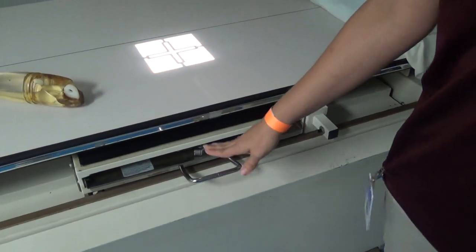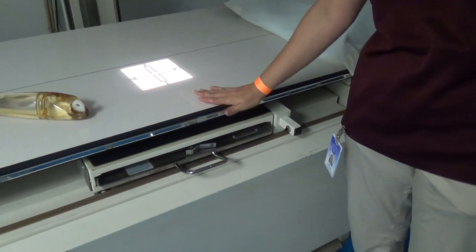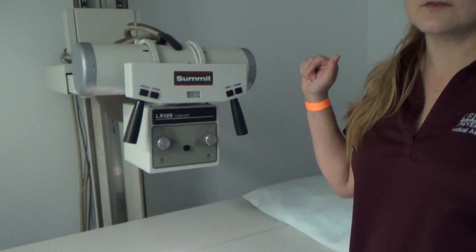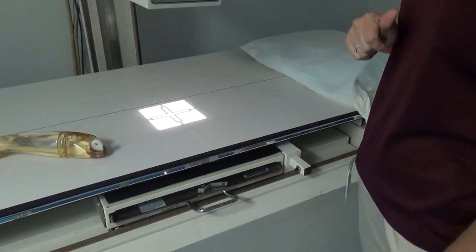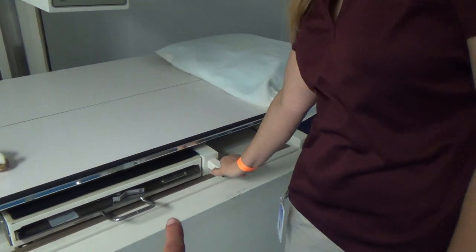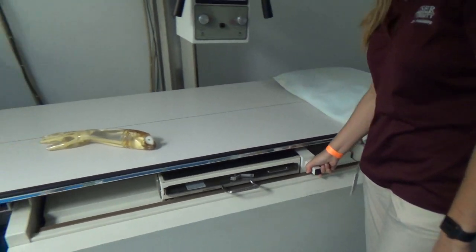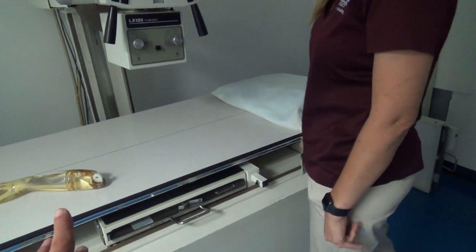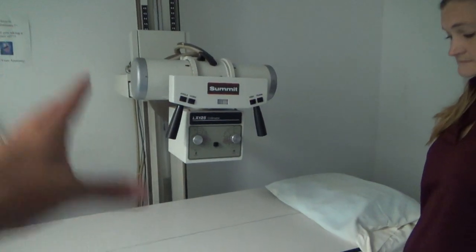This bucky tray doesn't come out on this side; on the other side it does. That's because of the difference between the digital and CR sides. This side has a built-in detector, while the other side has the bucky where you place your cassette. When you want to move it back and forth, there's a button you push in — everything moves with the lock, so you have to disengage the lock and it slides. We do that so we can center the image detector with the collimator, the housing, and your patient.